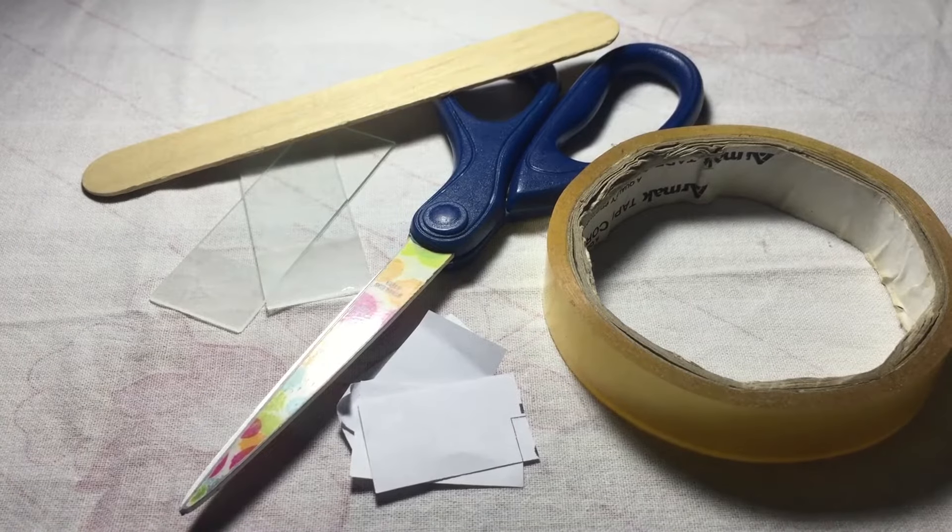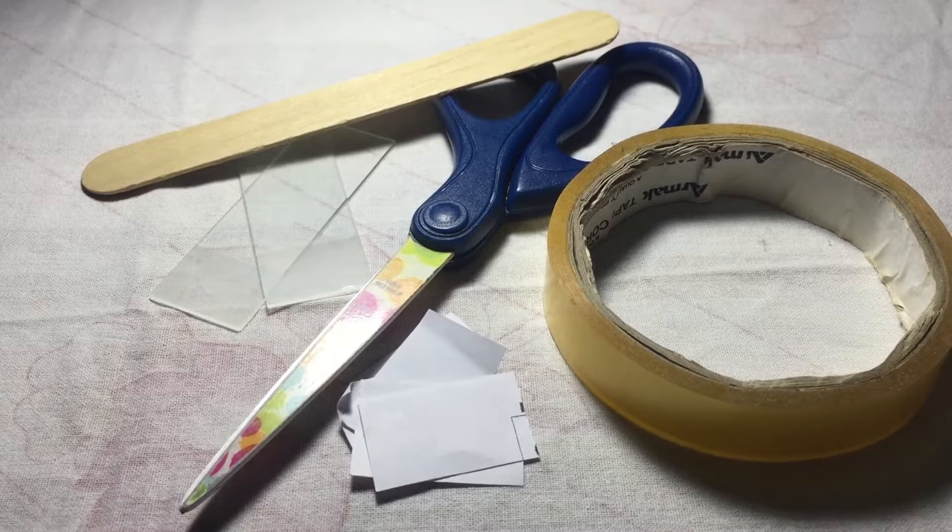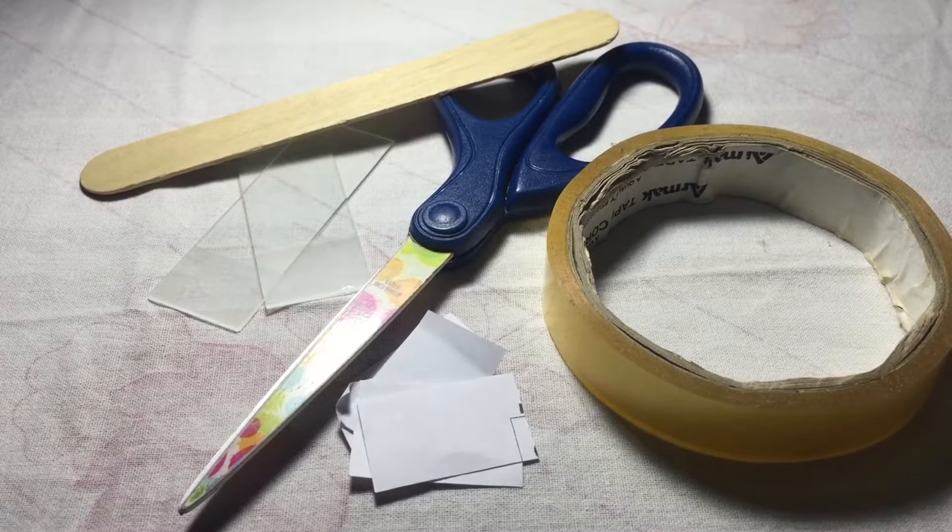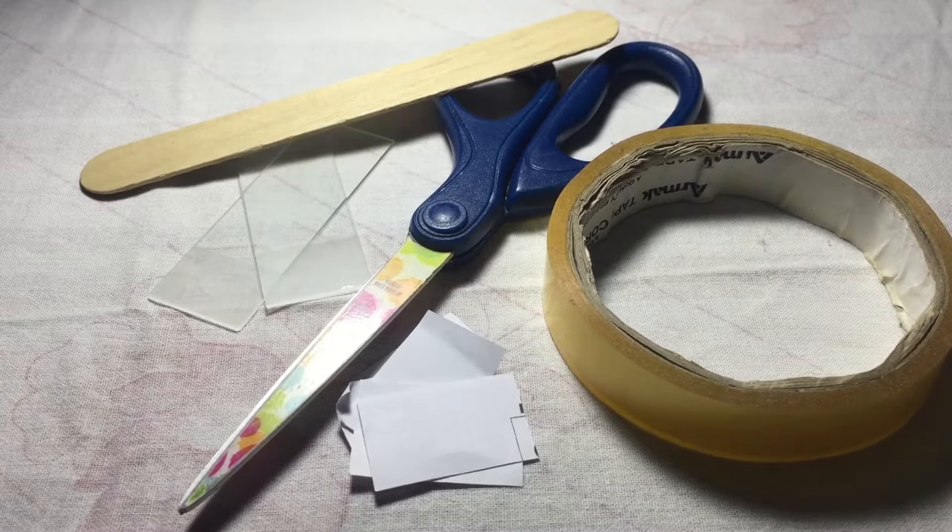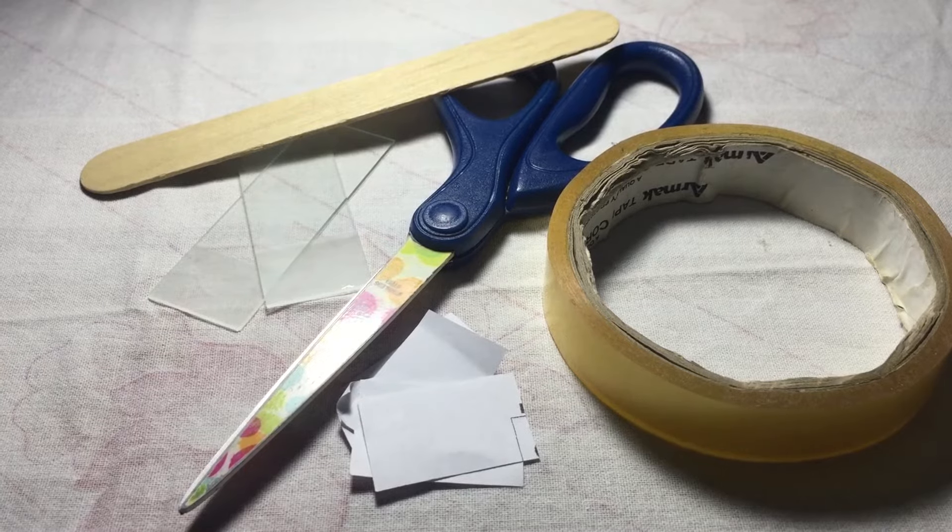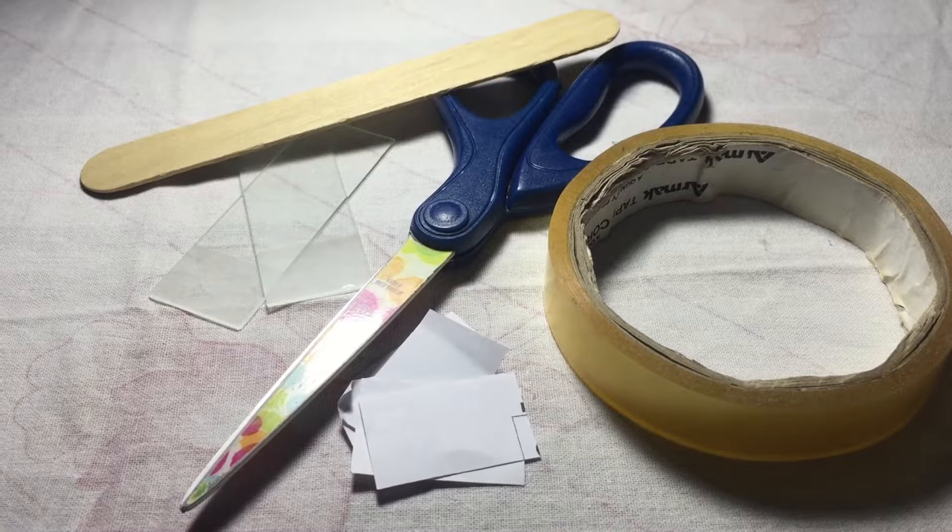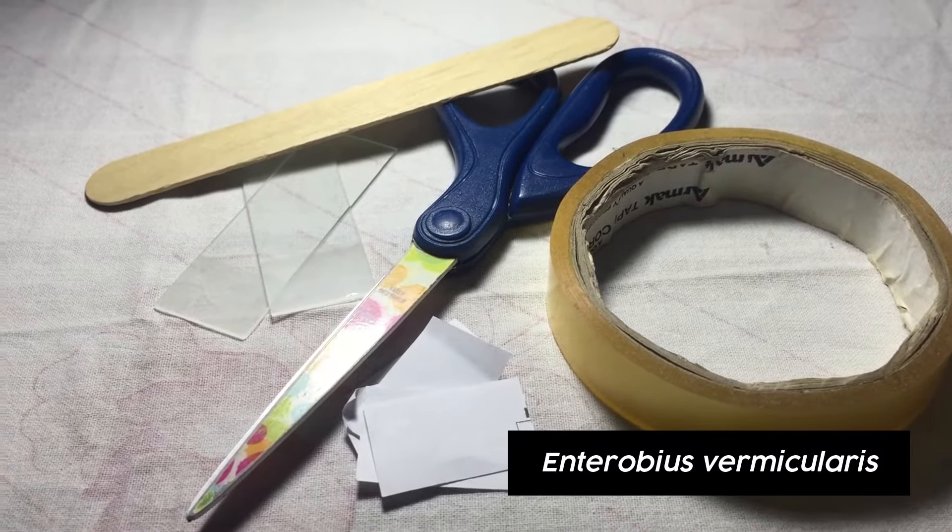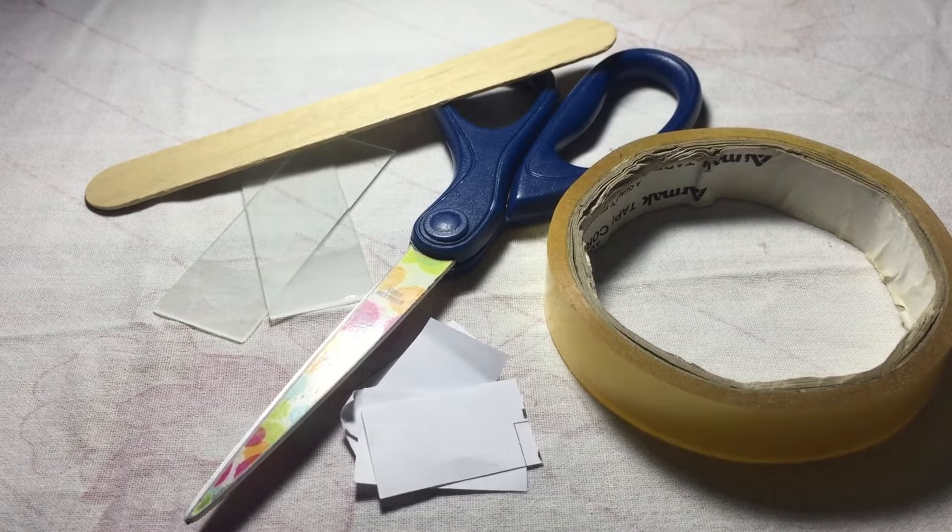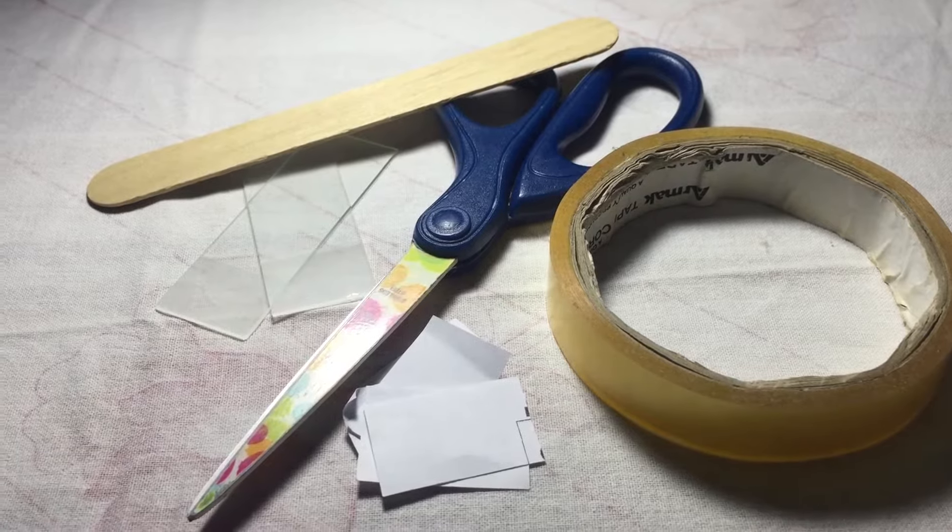Hello and welcome to this video on the preparation of the scotch tape swab. Recall that the scotch tape swab is the reference method for the diagnosis of Enterobius vermicularis or pinworm. The preparation of the scotch tape swab is quite easy. Before we start, let's first look at the materials that we need.